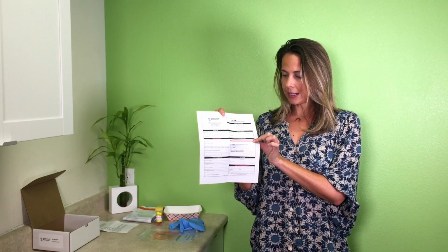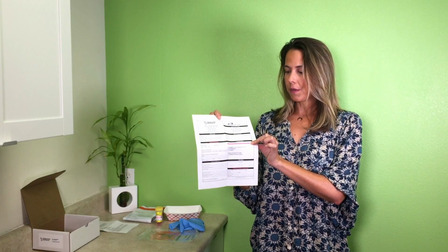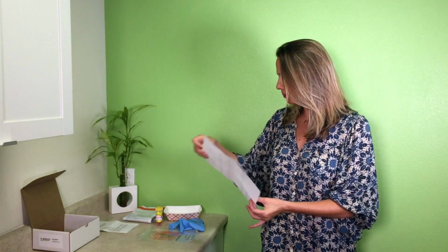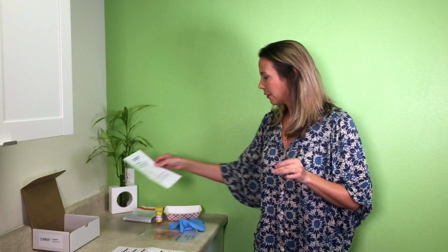We'll be in charge of everything else, except there's this little line in the test information section that says date samples collected, and you'll be the one that knows that. So fill that out as well, okay? So you have your test requisition form, you have your instruction manual, and I'm going to be as thorough as possible, but go ahead and read all of this before you get started. It'll reiterate everything for you, okay?